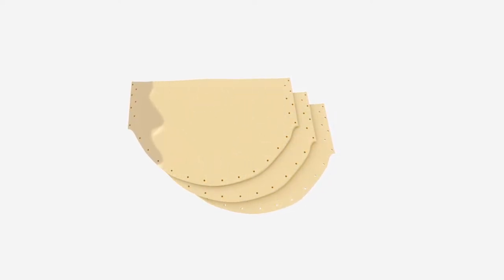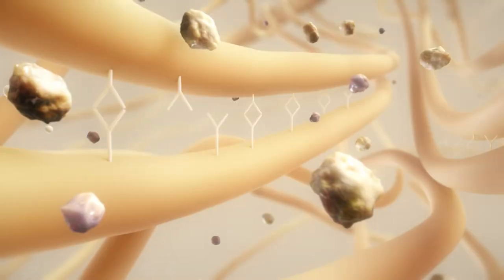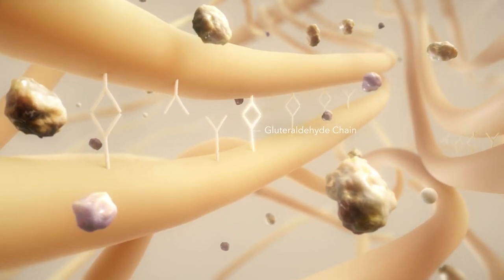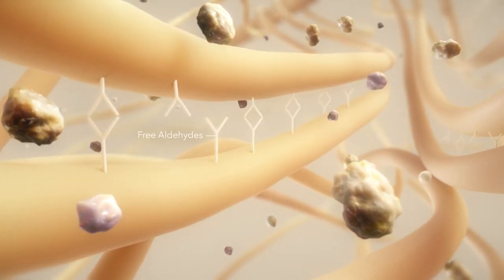In the fixation process, the tissue is treated with a glutaraldehyde solution. The collagen is now cross-linked with the glutaraldehyde chains. Some of these links remain unbound and are free aldehydes.